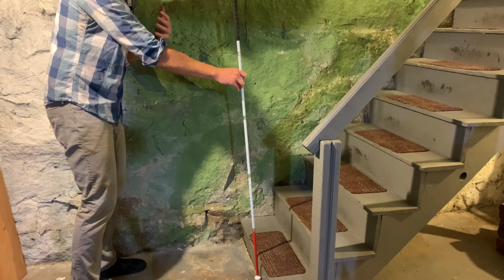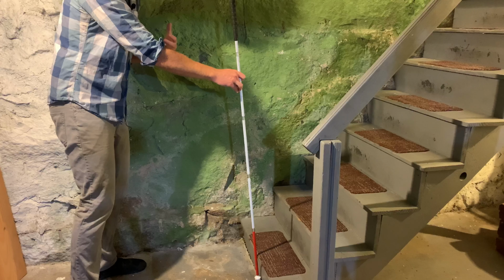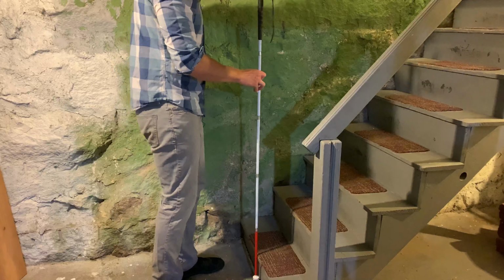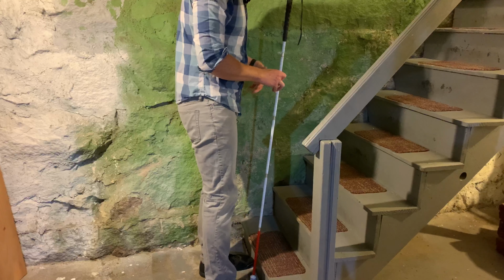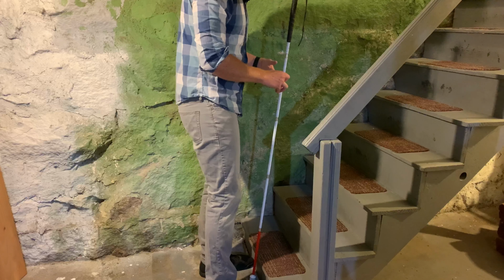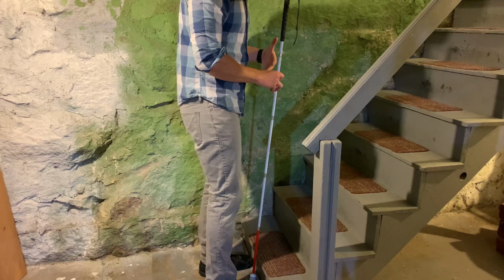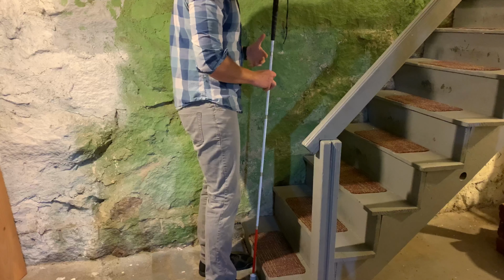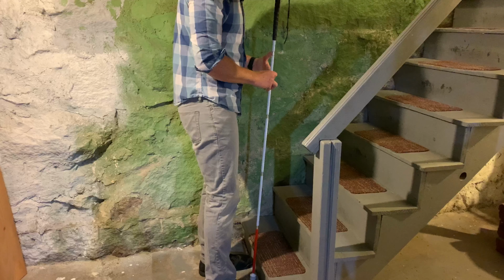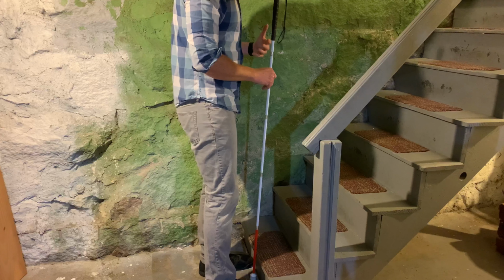Okay, so step three, once your cane is vertical, using pencil grip, you can now approach the bottom step with your feet. That way you're right up against the bottom of the first step. So I'm going to do that now. I'm walking up towards my vertical cane, and I'm going to find the bottom of the first step with my toes. You don't want to go too fast that you trip, but you can kind of shuffle forward until your toes are touching the bottom of that first step. And I like to have the cane actually in between my two feet. That way I'm lined up pretty good. So right now my feet are touching the bottom of the first step, and the cane is vertical in between my legs. I'm still in pencil grip, and then we can go on to step four.